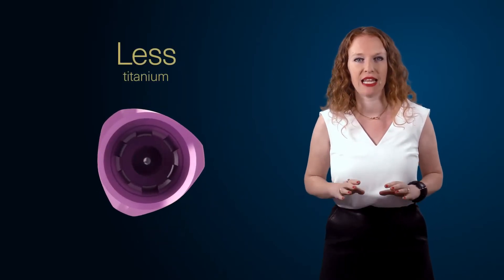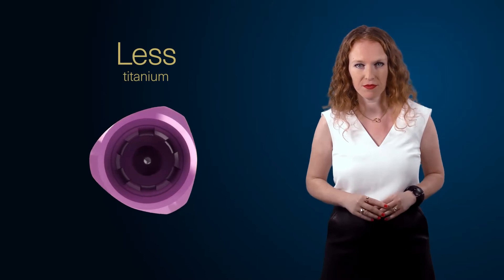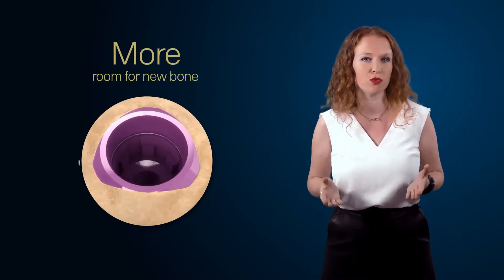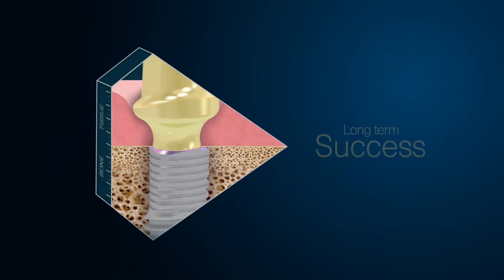First of all, a triangular shape means less titanium. This means that there is actually more room for new bone to grow. Bone growth is critical for the long-term success of the implant and its effect on any restoration that will be connected to it.